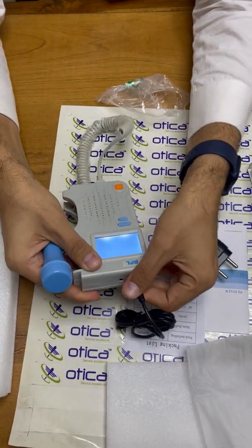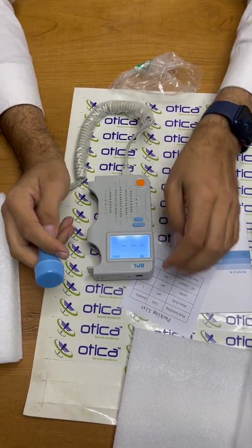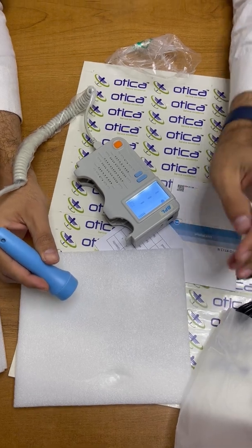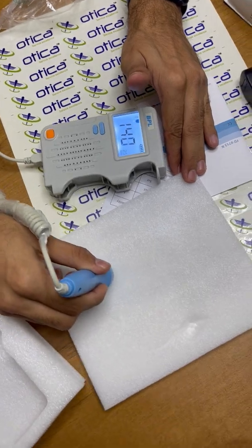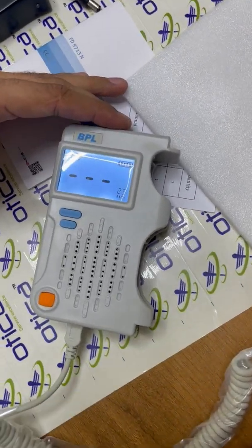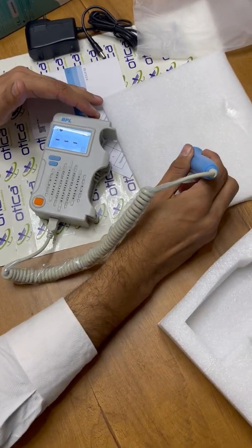Currently the machine is fully charged. Normally you have to apply ultrasonography gel on the patient's belly. Think of this as the belly of the pregnant woman — you can detect the fetal heart rate by placing this probe. This device will not give you any output until and unless you apply ultrasonic gel. Ultrasonic or any conductive gel is a very necessary part to have communication with the fetal heart monitor.